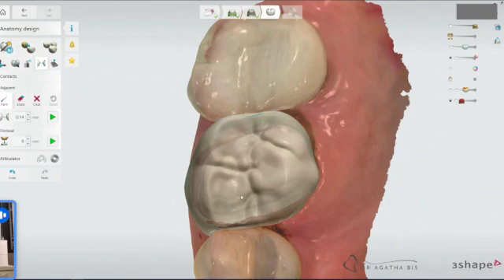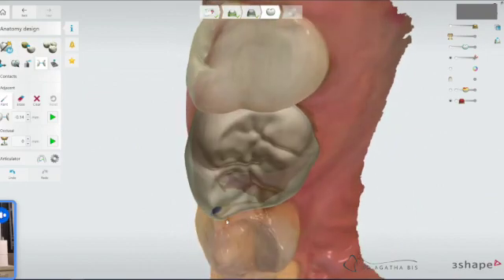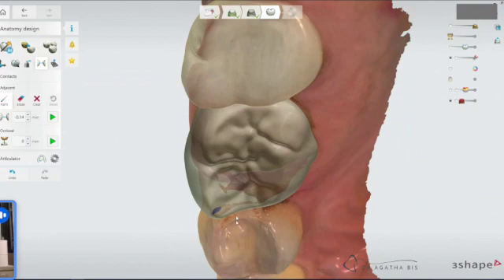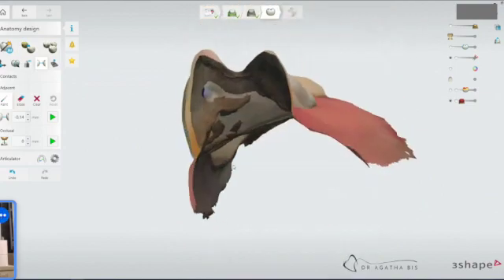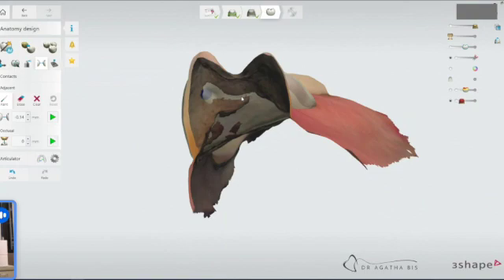Sometimes it's not in an ideal spot. Here it's kind of an odd spot. So what I would do is just flip it to see the contact. You can only pull the contact through by starting on the blue area that's already there. So if you start here, I can't add. But if I start clicking here, I can pull the contact through.